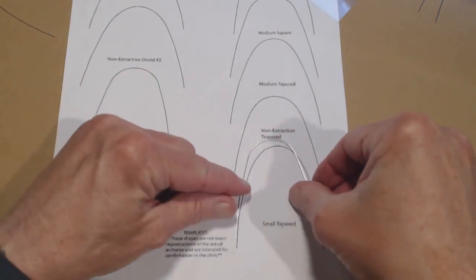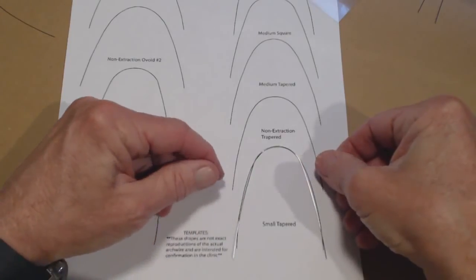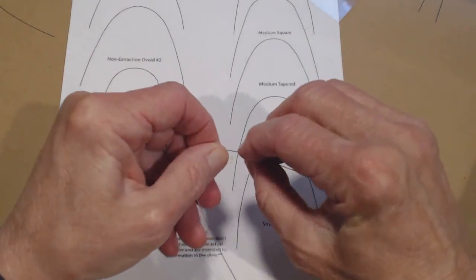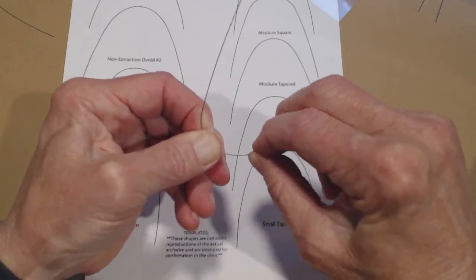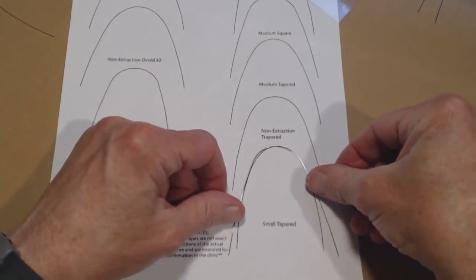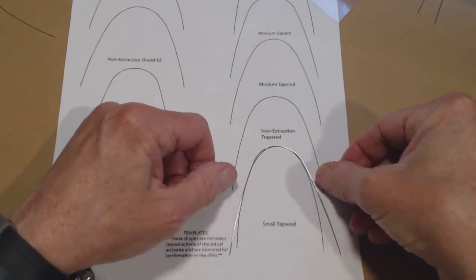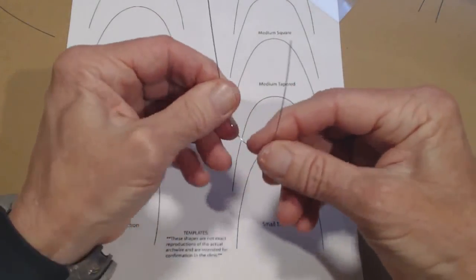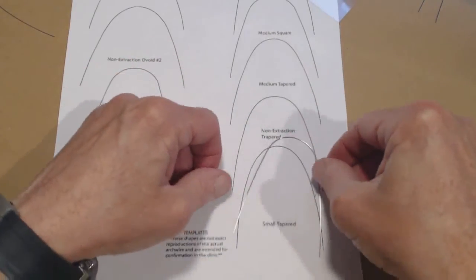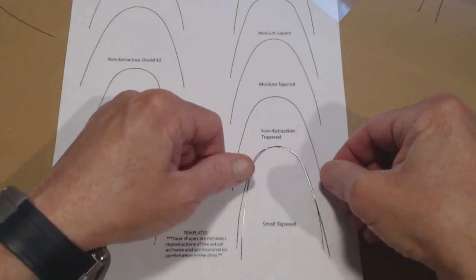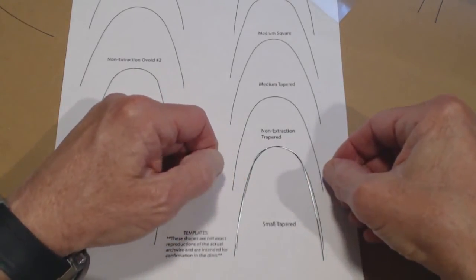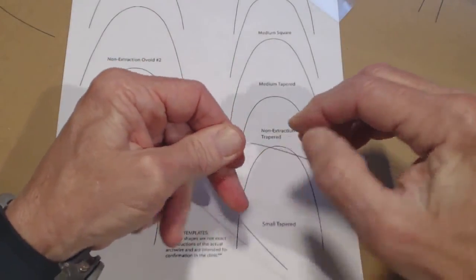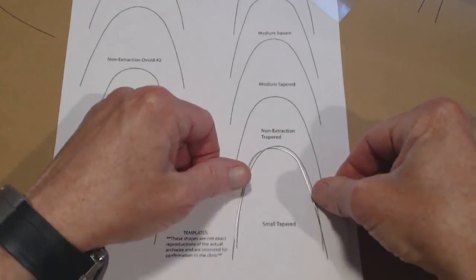Understanding that concept of the radius and where does it change is important, in my opinion. And you can see I'm pretty close, but I need to have it a little bit wider. You have to look and see where it starts being good and then where it starts being bad. And I overdid it. So now we have to make it come back in a little bit. So in the front I look pretty good. And in the back I'm pretty close. I can get it even a little bit better. There you go.